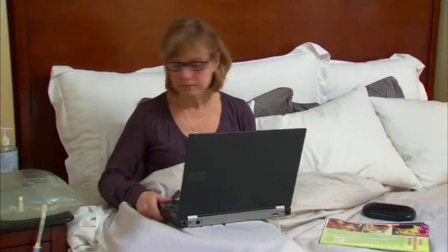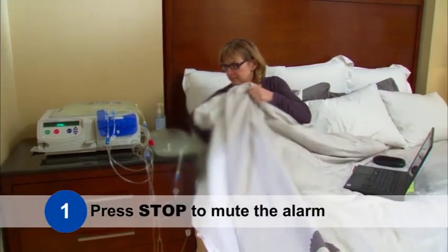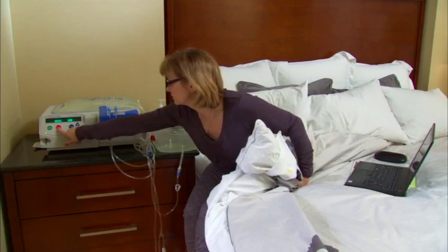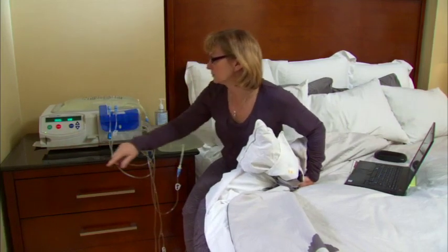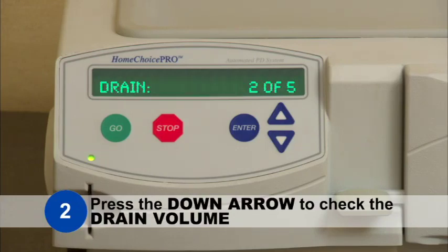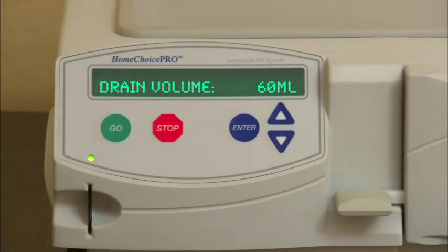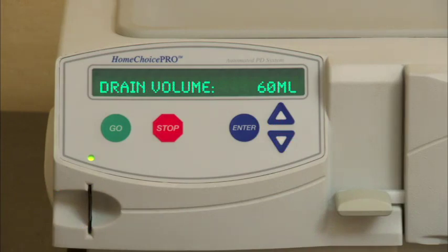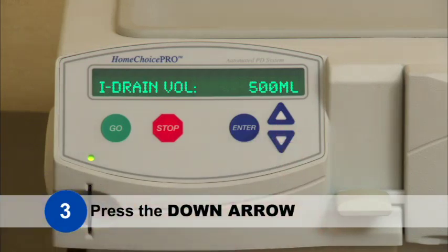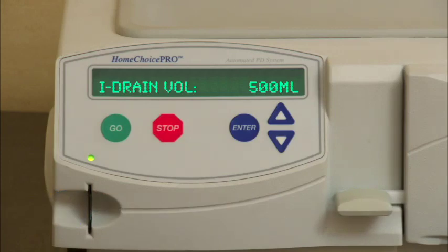If the alarm occurs again, your patient should: Step 1 — Press Stop to mute the alarm. Step 2 — Press the down arrow to check the drain volume. The screen will display the amount drained as drain volume in milliliters. Step 3 — Press the down arrow again. The screen will display initial drain volume in milliliters if the alarm occurred after the initial drain was completed.